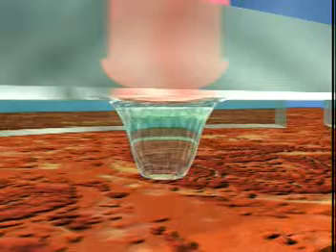Activate the laser through the cap onto the cells of interest. The high sensitivity transfer film expands and becomes adhesive only in the areas exposed to the laser beam. The precise expansion of the polymer allows for the selection of a single cell or large groups of homogeneous cells.